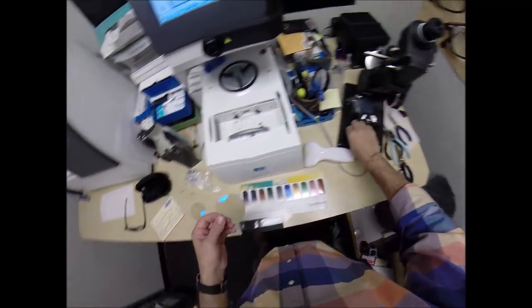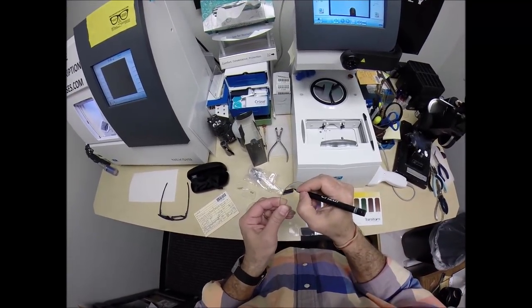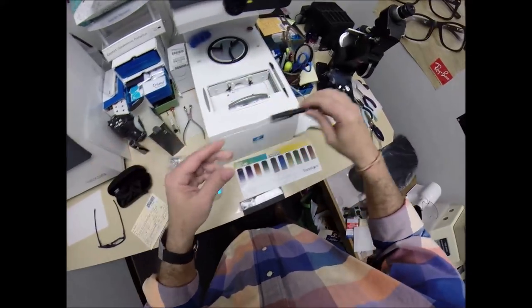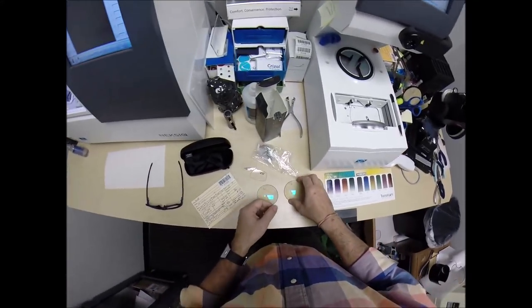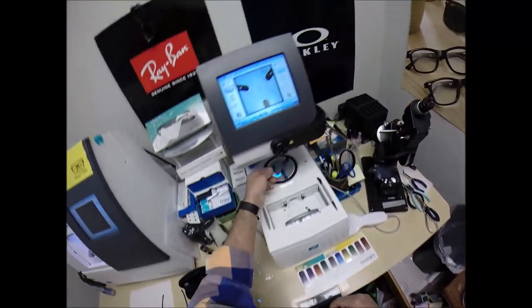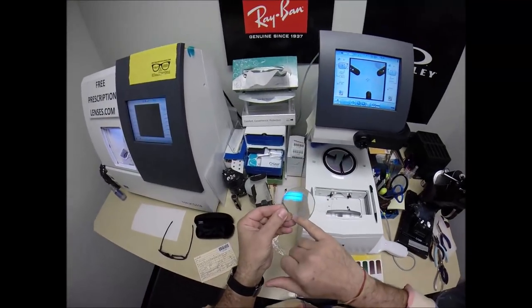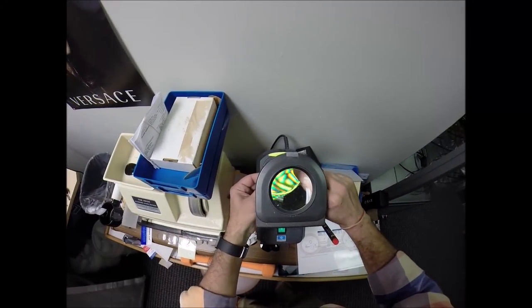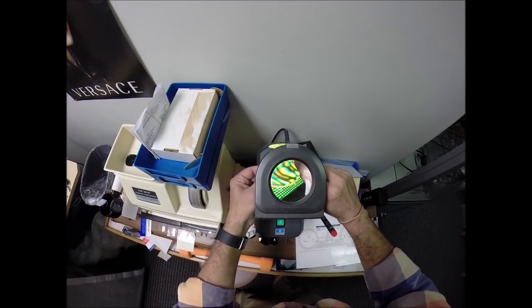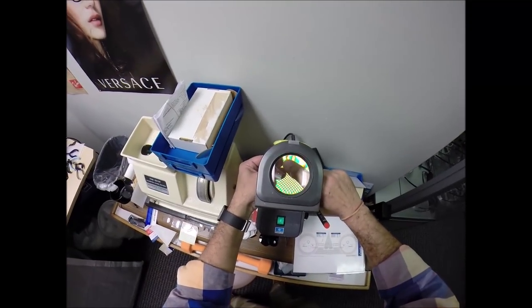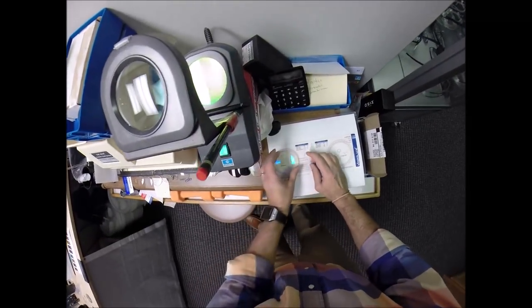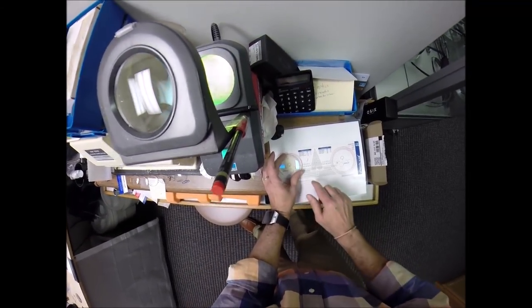If you guys don't know which is the right or left, let me recap. That's now your right lens because it has an R on there. I've underlined the strength of the bifocal power, the progressive. Every progressive has little laser engravings, two circles on the end, and then the power. This says 2.2, which means 2.25.